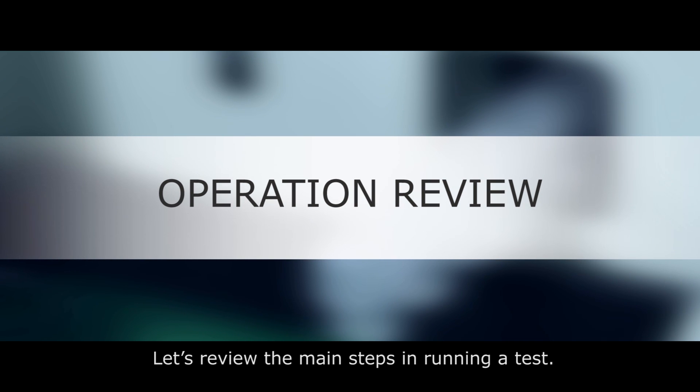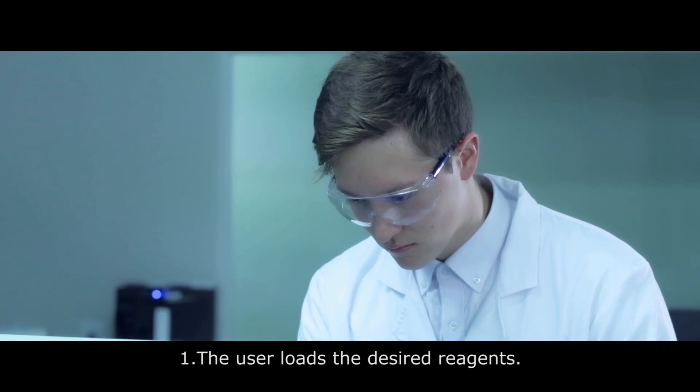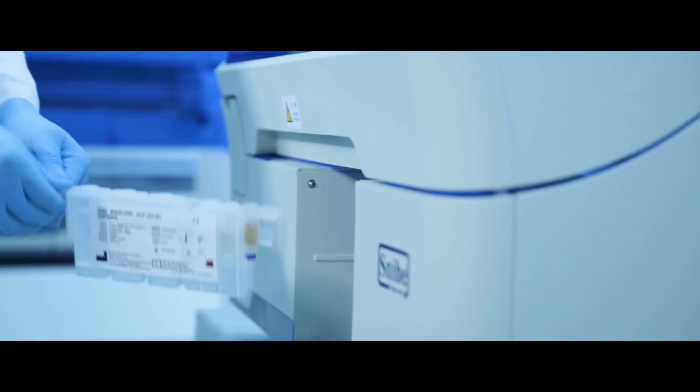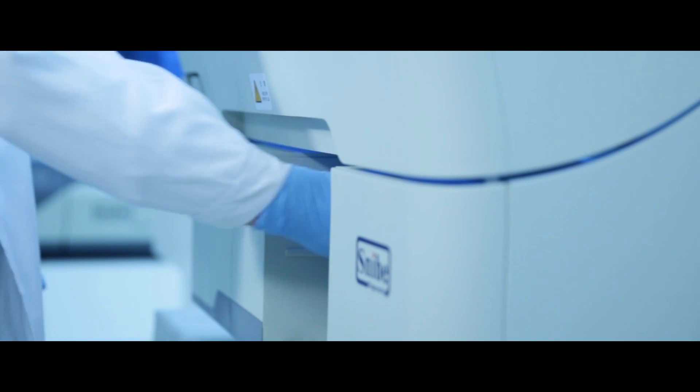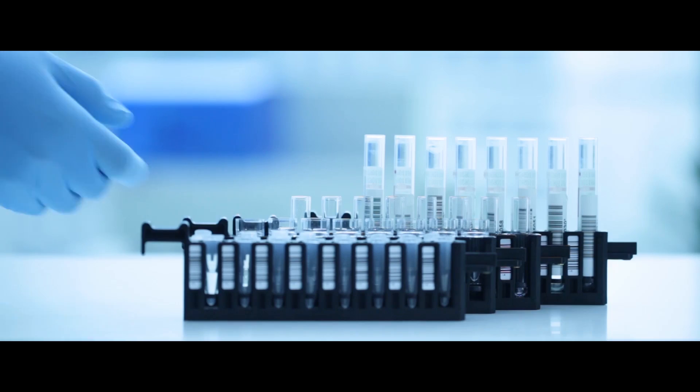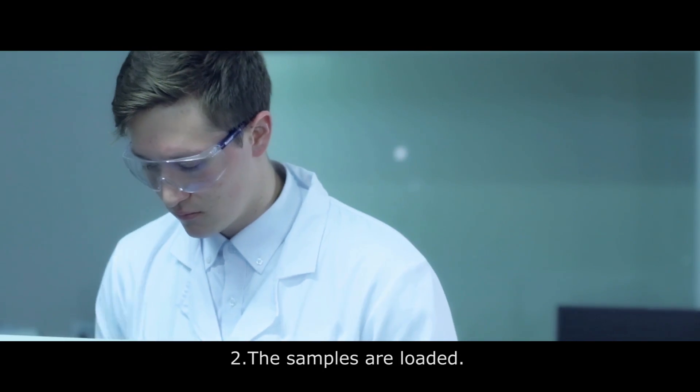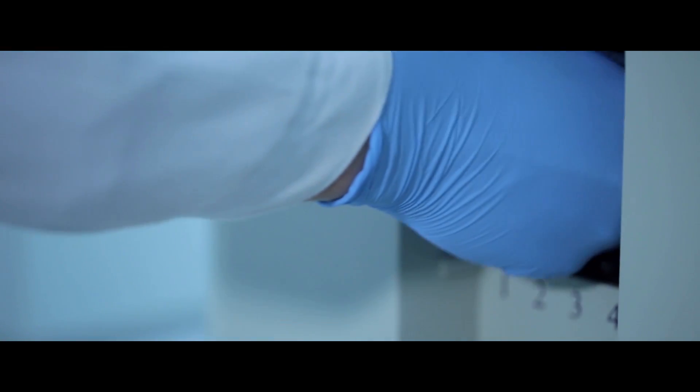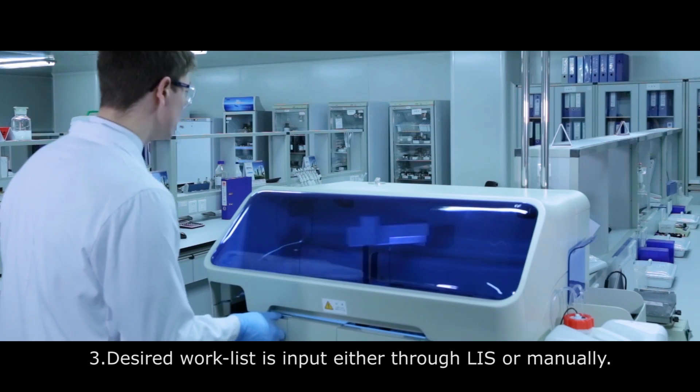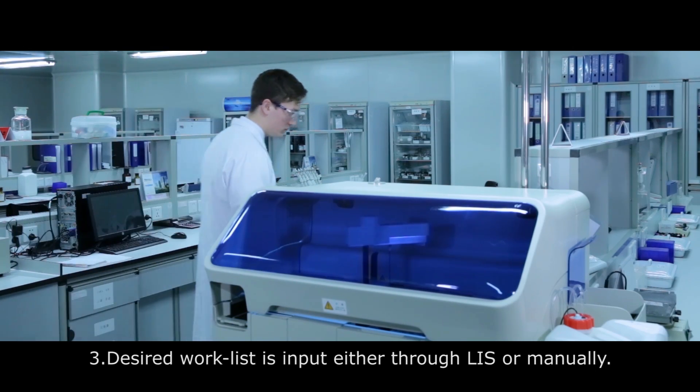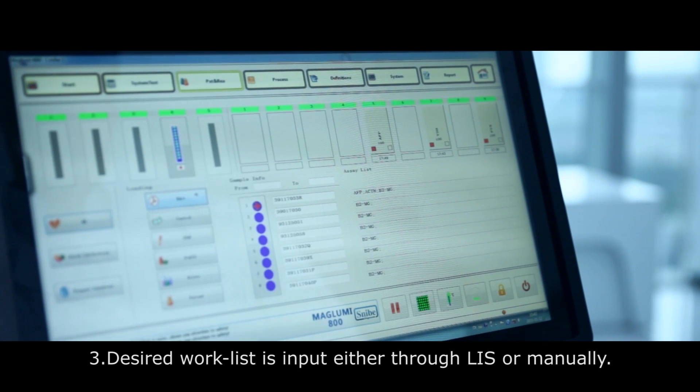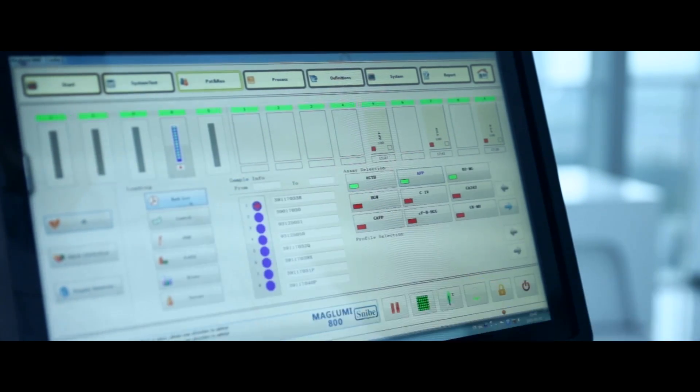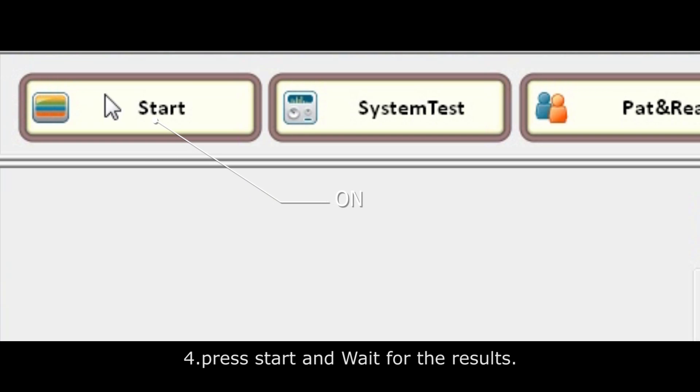Let's review the main steps in running a test. 1. The user loads the desired reagents. 2. The samples are loaded. 3. Desired worklist is input either through LIS or manually. 4. Press start and wait for the results.